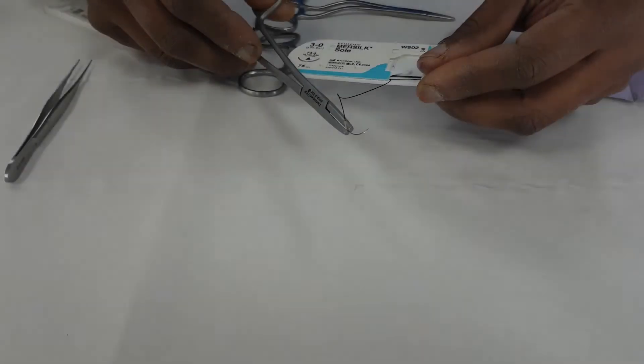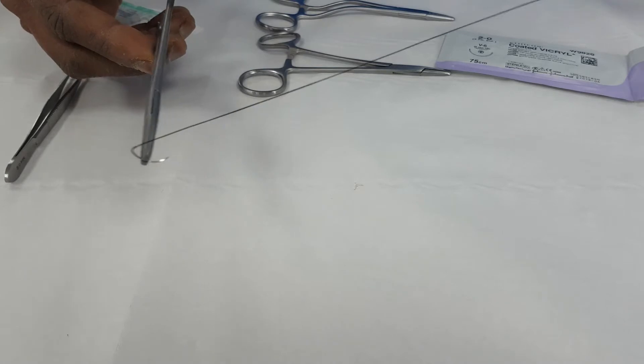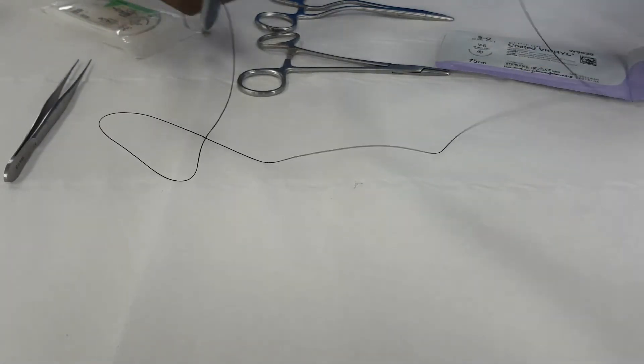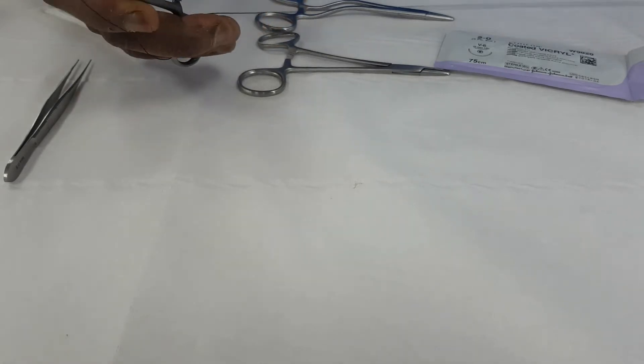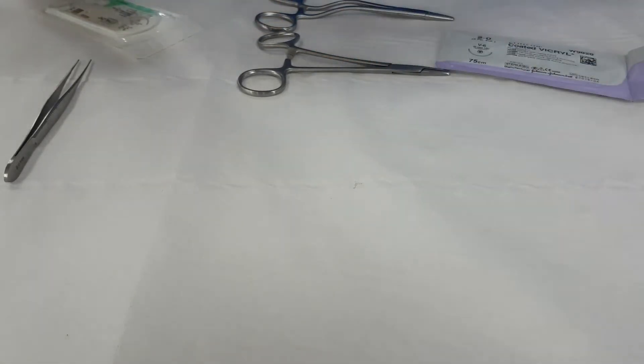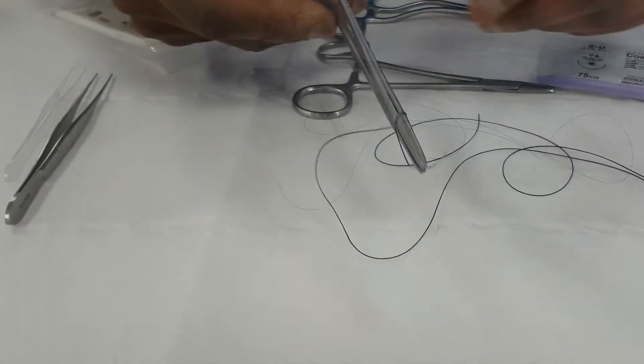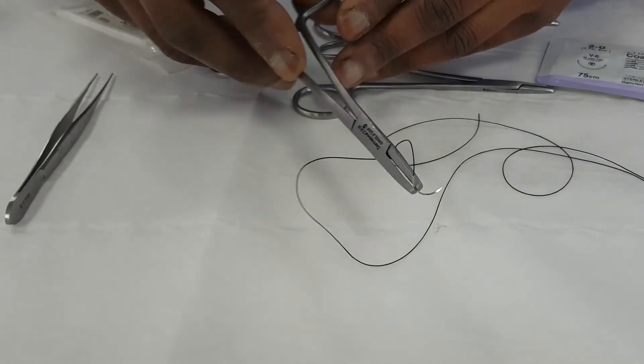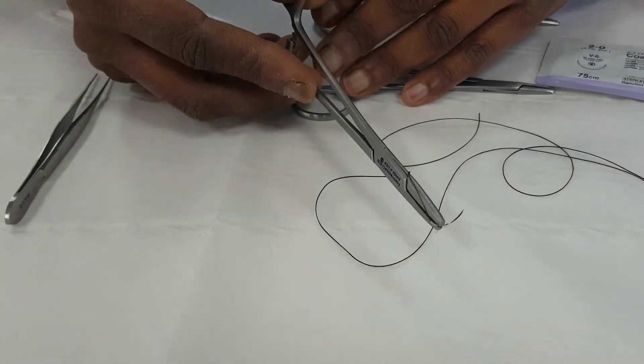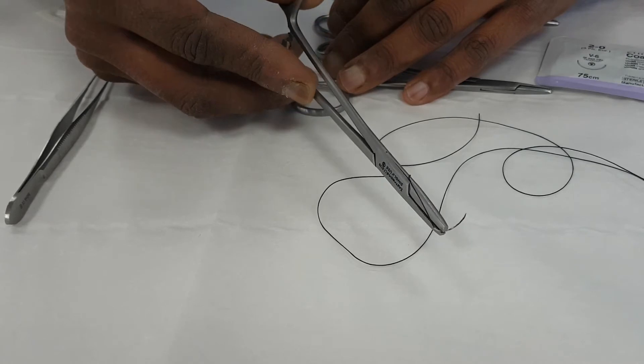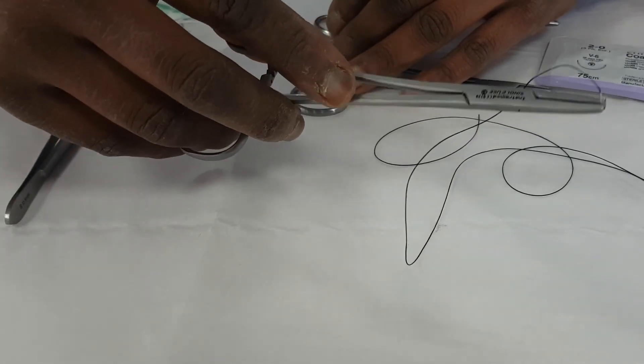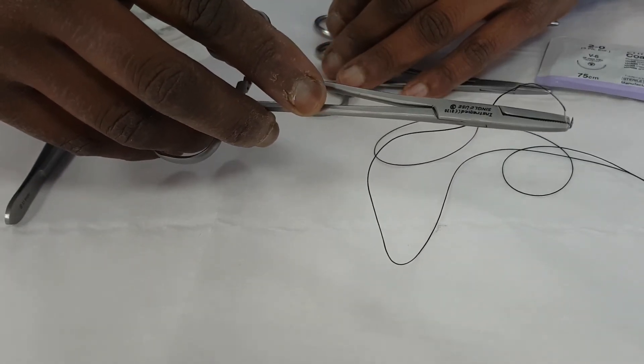So let's see how we actually use it. If we take this out of the packet, the whole thing will come out in a completely straight line, without kinking, without turning, without curling. And we've got the length of stitch that we want. This is a really massive stitch that we have here. And so you can see that my action would be that movement happening without any shake or tremor, because I'm using my finger to support the needle holder at that point.